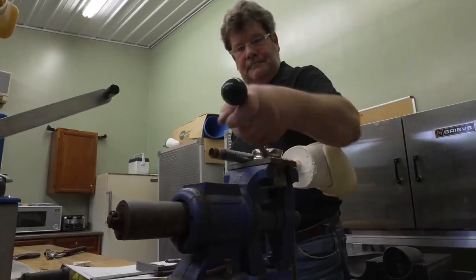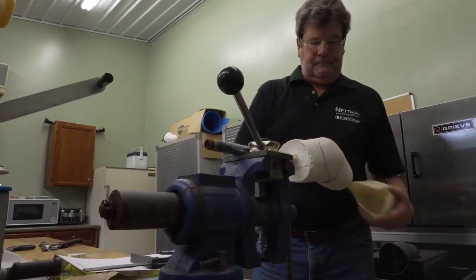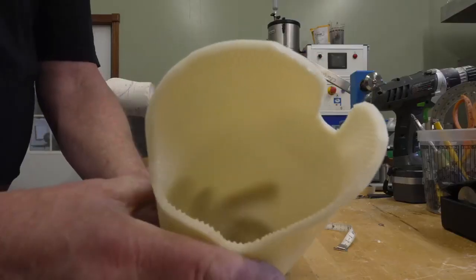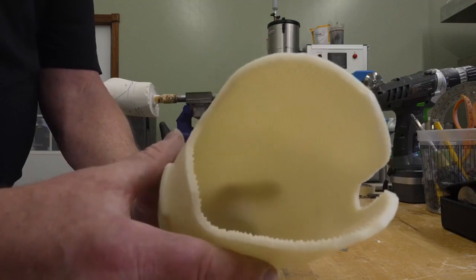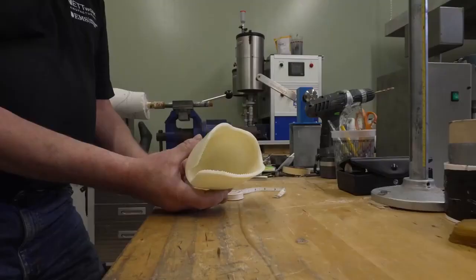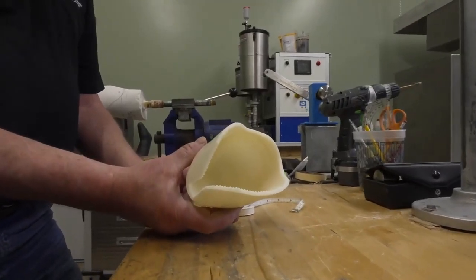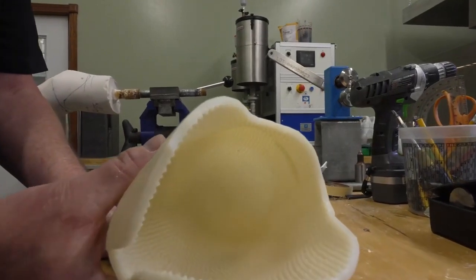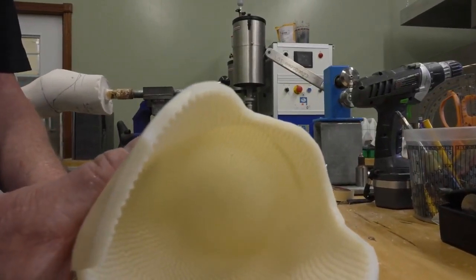Each EMS is built to each customer's limb — everything is 100% custom made for them, rather than off-the-shelf small, medium, large which creates bunching and isn't fit for everyone. We experimented a lot to come up with a way that we could create more contact surface for the adhesion of the unit itself with the flesh.